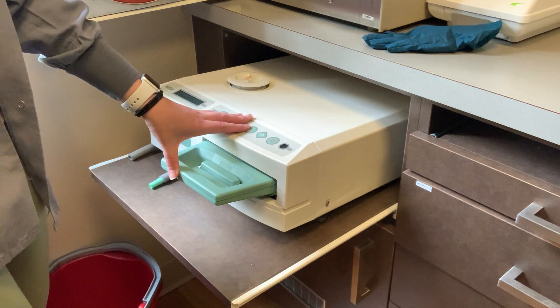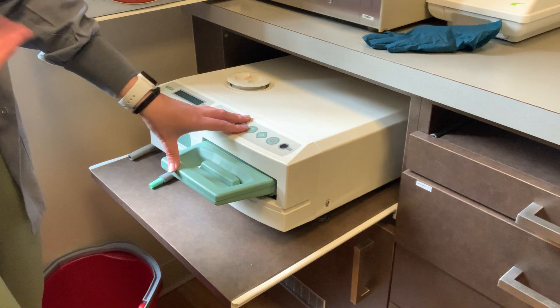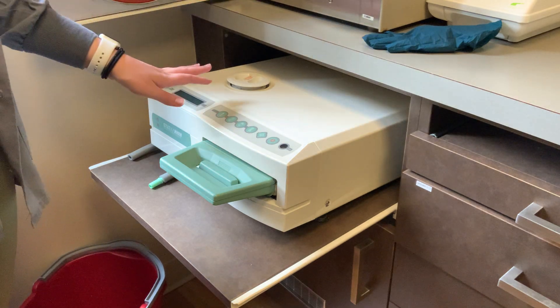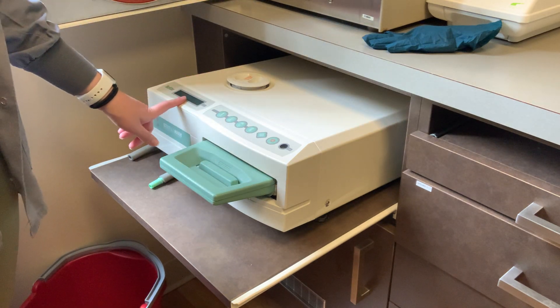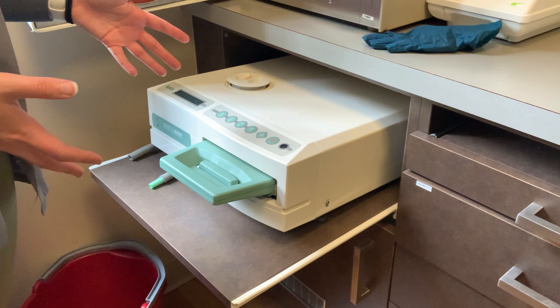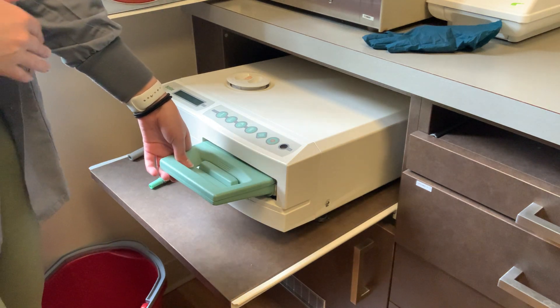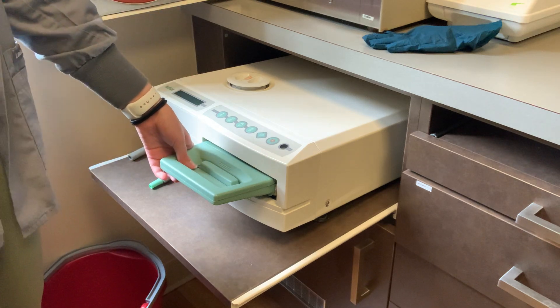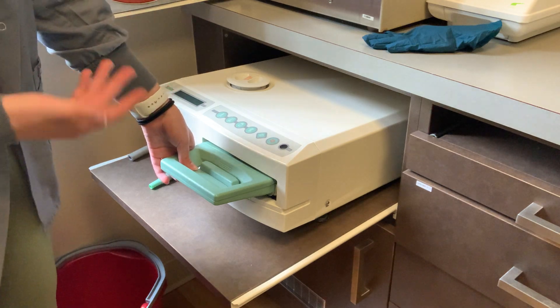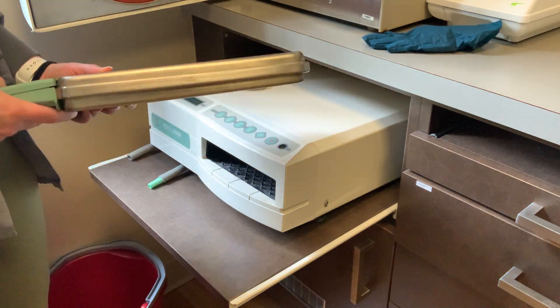This is going to be used when we need something quickly. Let's say you're in surgery and you drop something on the floor and it's something you need right now. We have the M11 above and the Statim here. The time settings say they're the same, but the difference is the M11 has a big chamber that it has to fill and get up to pressure, so it takes time to build that pressure. It will sterilize in five minutes, but the time it takes to reach that pressure before the five-minute timer starts is a lot longer compared to the Statim. The Statim has this tiny cassette.